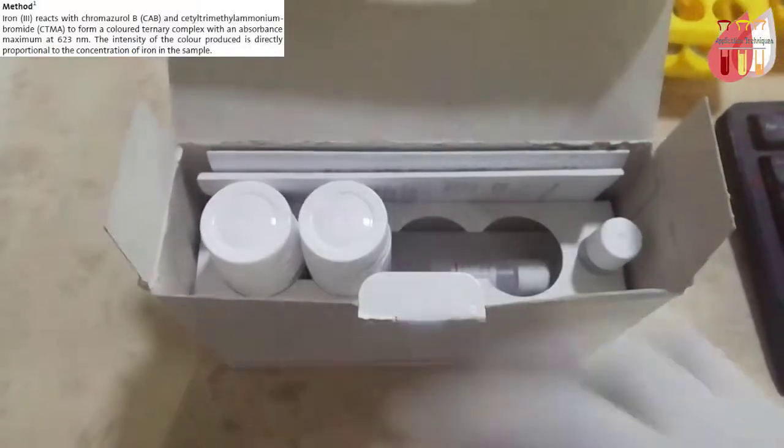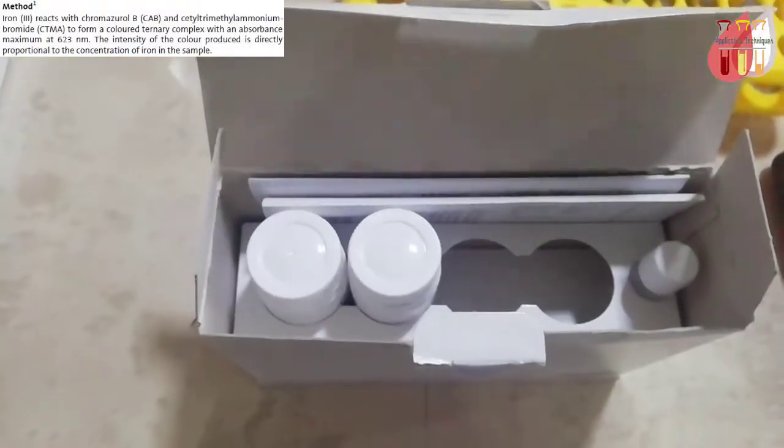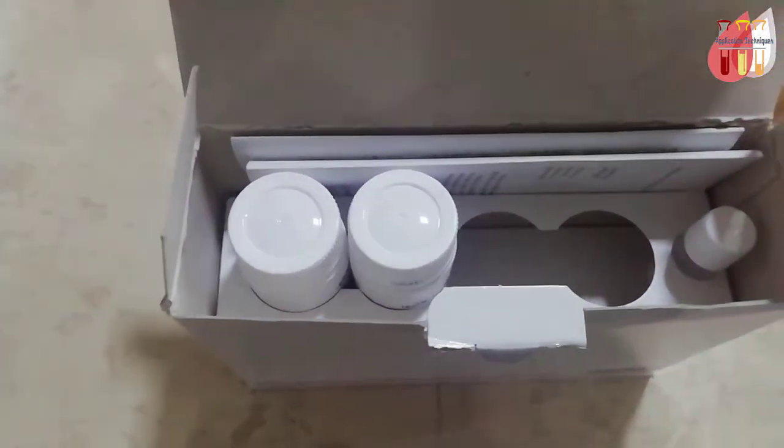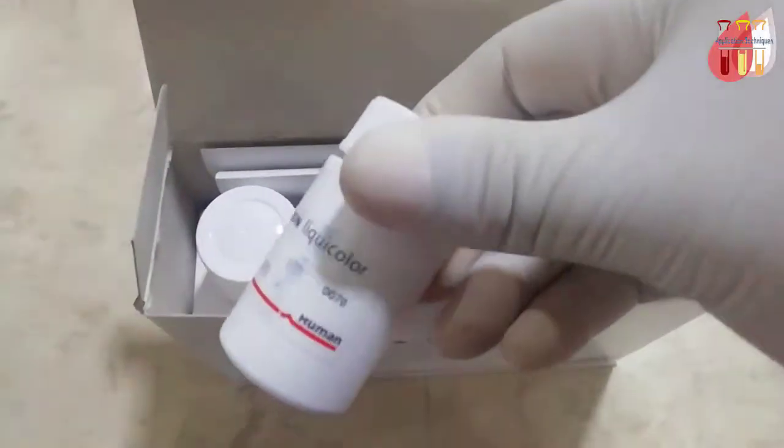The 60ml pack size contains two 30ml vials with 5ml standard and access literature.